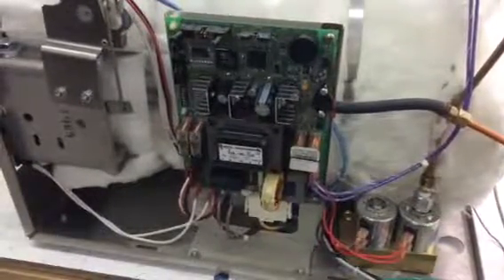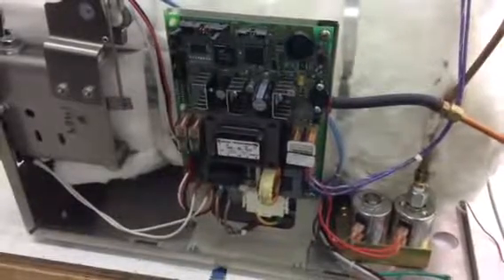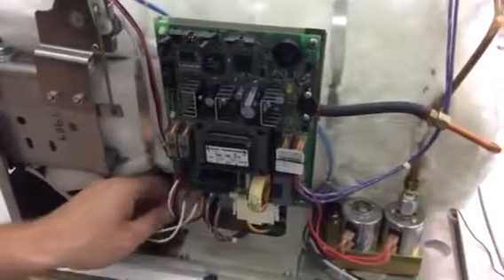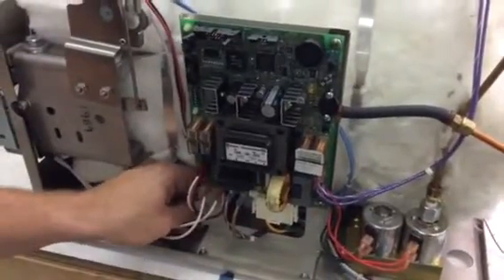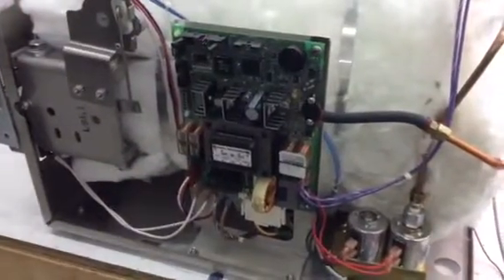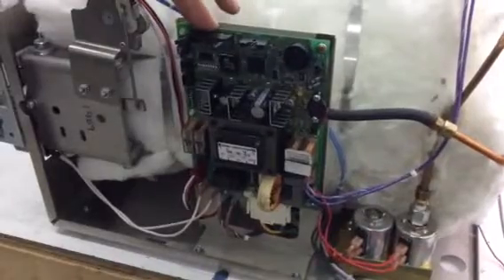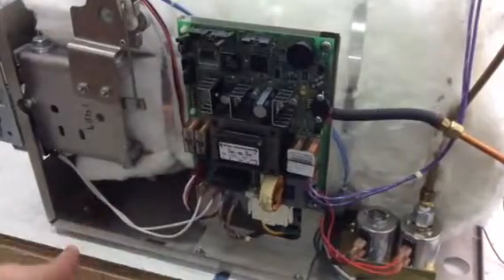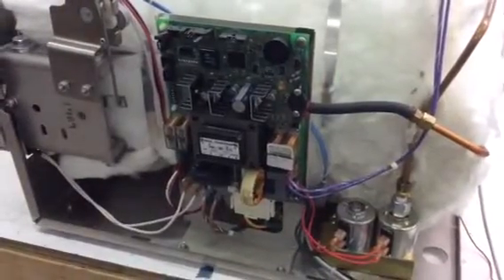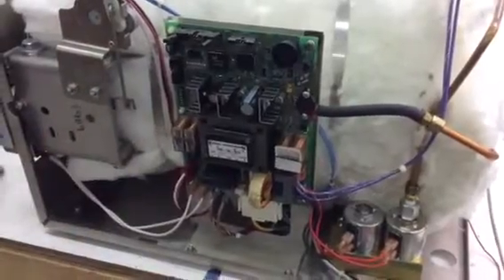statumusa.com, Sterilizer Autoclave Solutions, 704-966-1650. We are doing a quick video on how to take the PC board off of a new style M11. This is a new style M11 with all the covers, doors, and side panels off. To get to this PC board, there is a right side panel with two screws on the top and one in the back that you will have to unscrew.